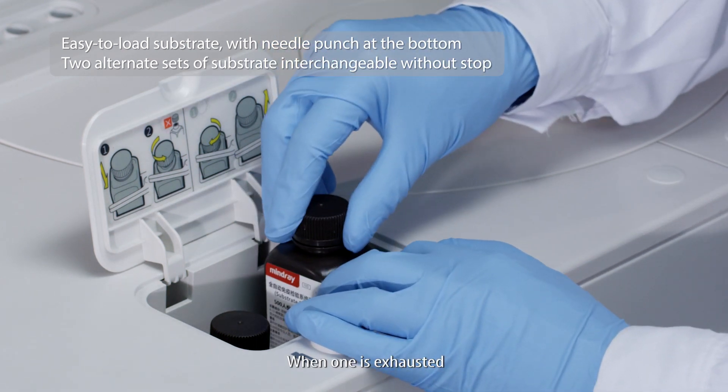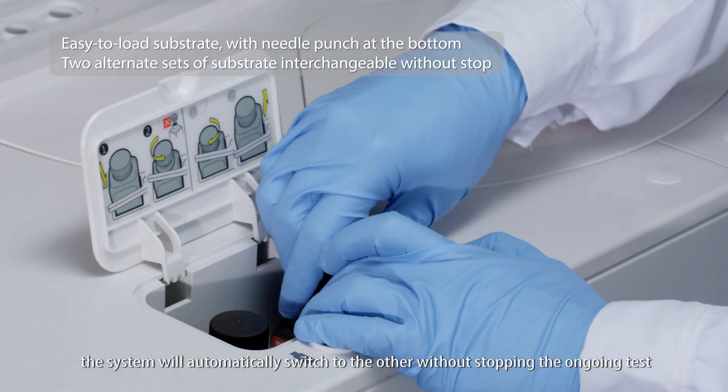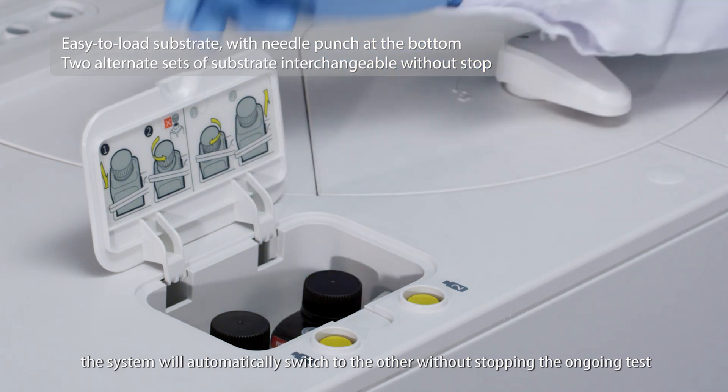When one is exhausted, the system will automatically switch to the other without stopping the ongoing test.